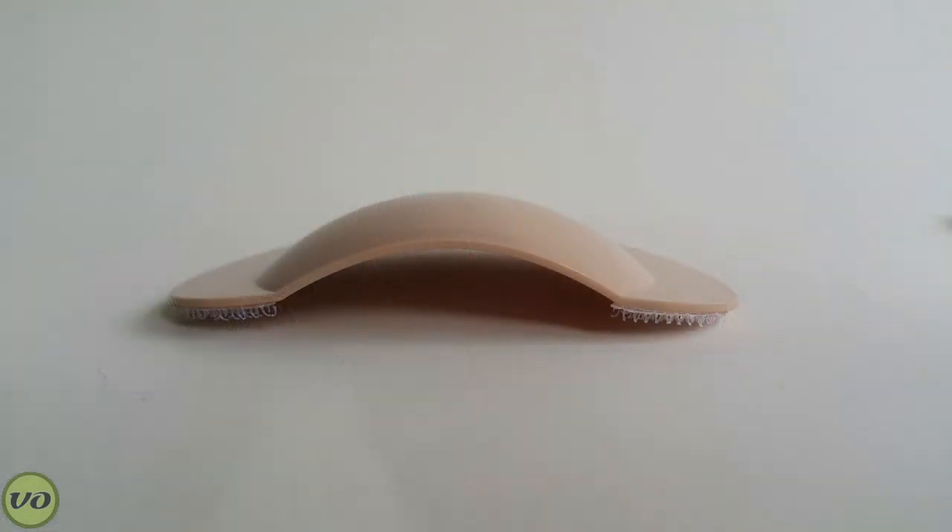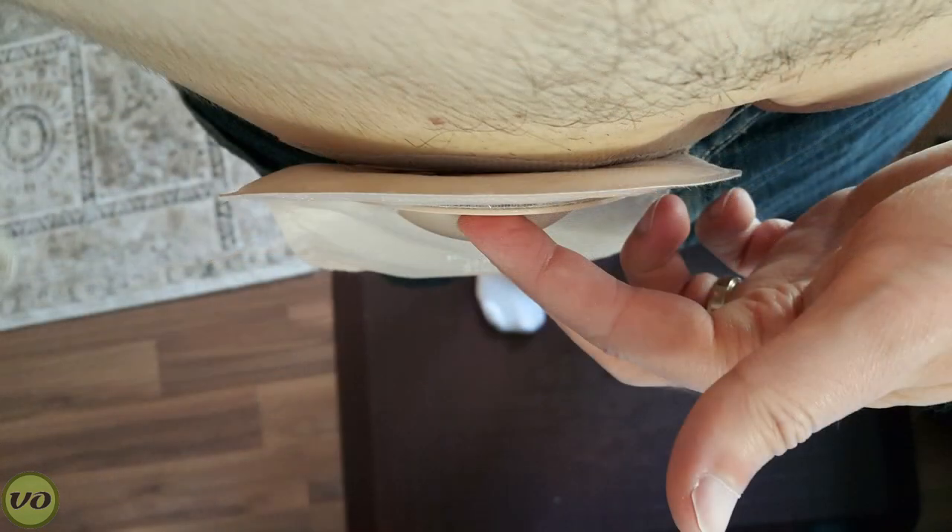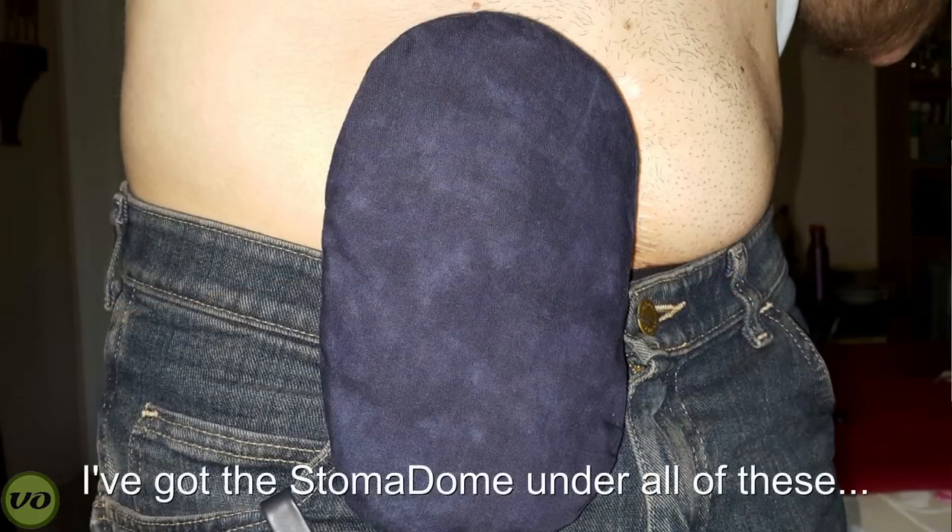For convenience, the guard actually works out pretty well. Because it's such a small guard, you can throw it in your supply bag, travel kit, or purse, and basically attach it on whenever you need to. It's not bulky at all, so in that regard it's actually really cool.